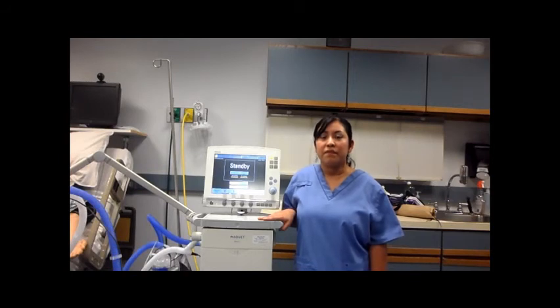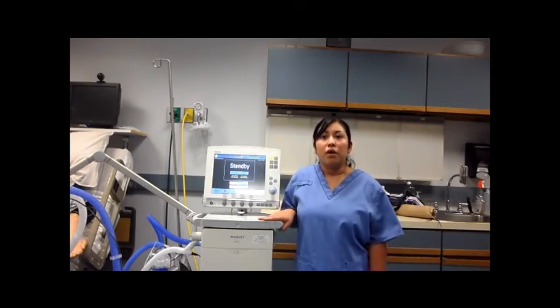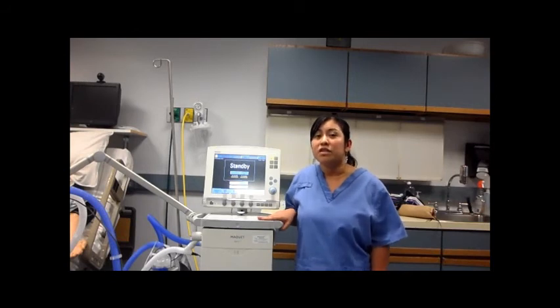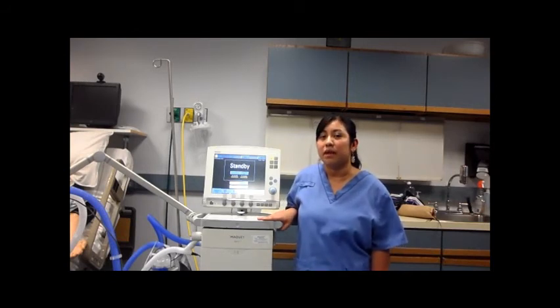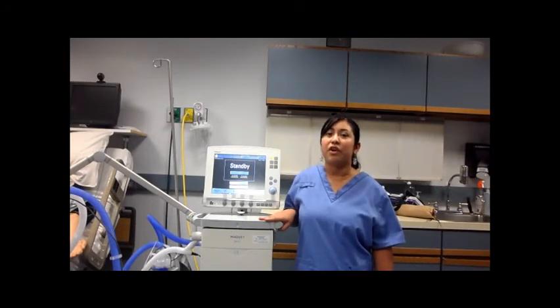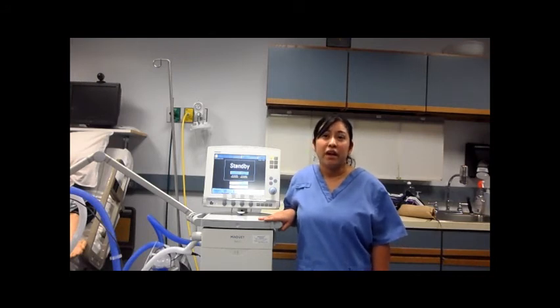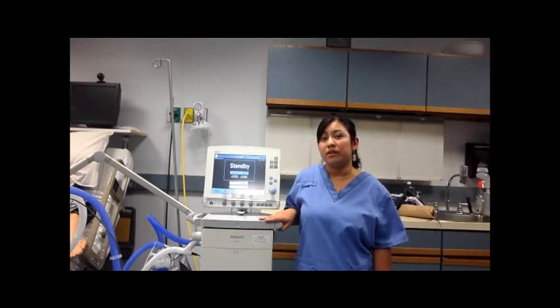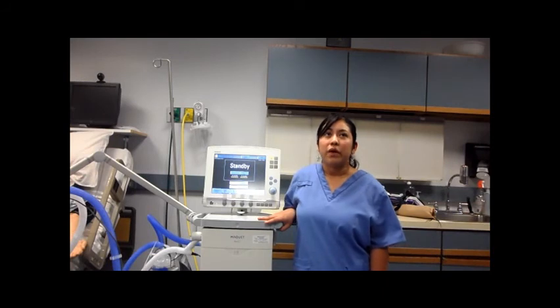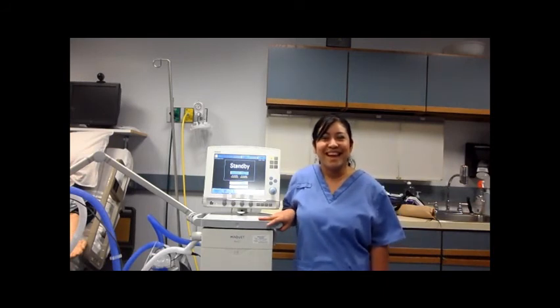Their heart rate, if it is increasing over time, we should also probably administer pain medication, or their anxiety is probably elevating. We also have to look at their heart rate if the patient is probably air hungry. We also have to look at the SpO2 readings and see how they're doing on this mode. And we also look for accessory muscle use.